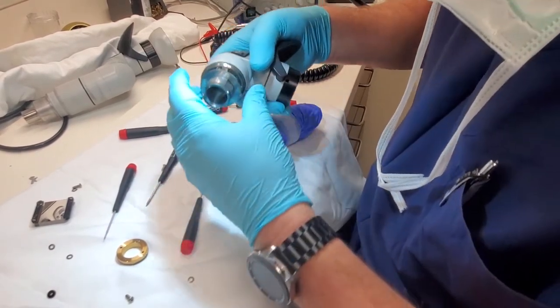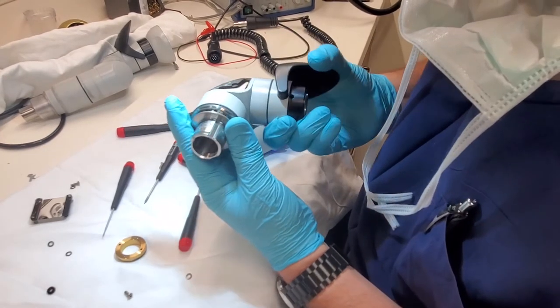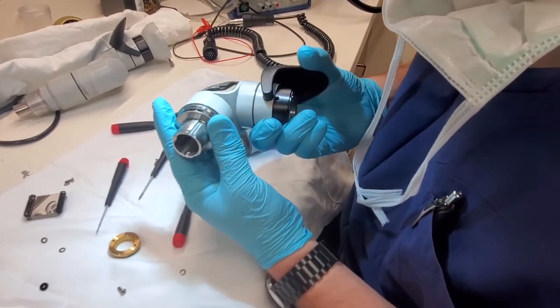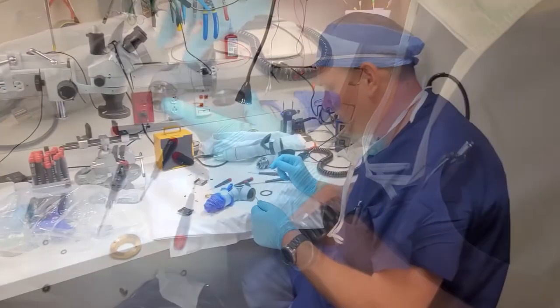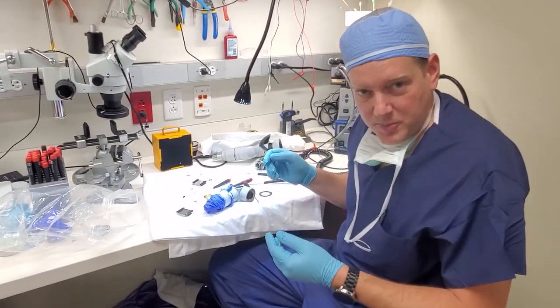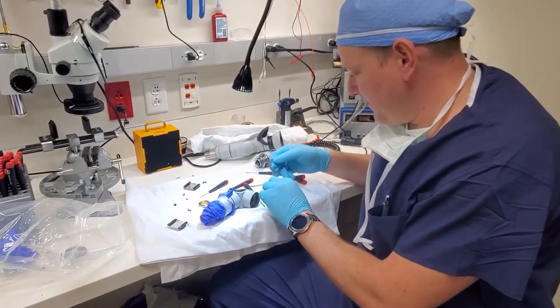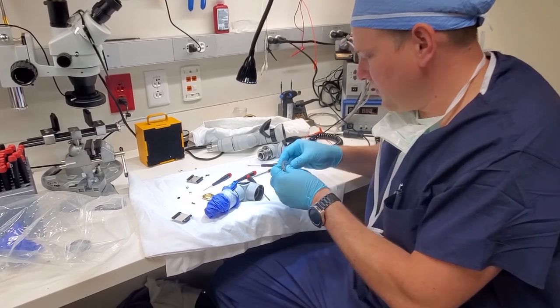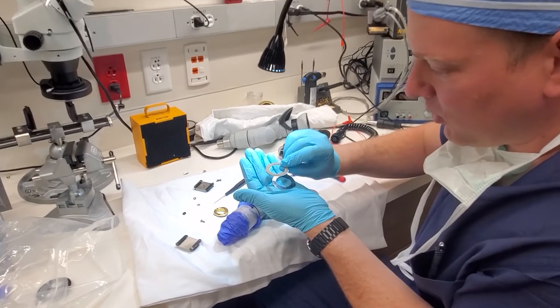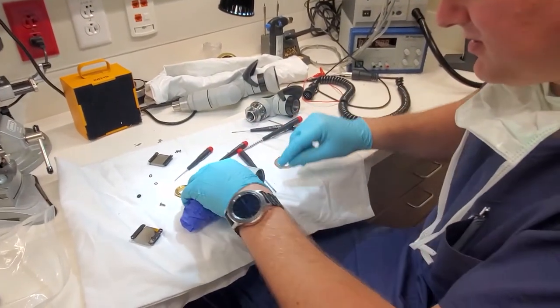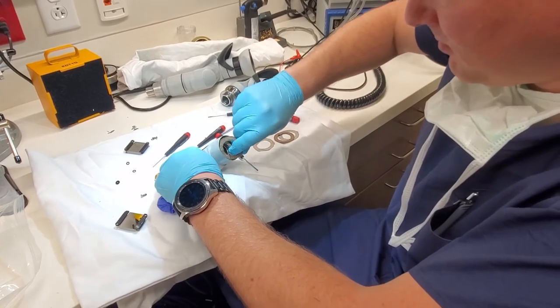Let's take a look at what we got going on here for these clutch packs. It's relaxing this ring right here which is relaxing the clutch pack. We're going to pull the clutch pack out. It's going to come out in pieces. You're going to have stainless steel and then a double-sided cork on stainless steel. There's going to be about 15 of them in there.